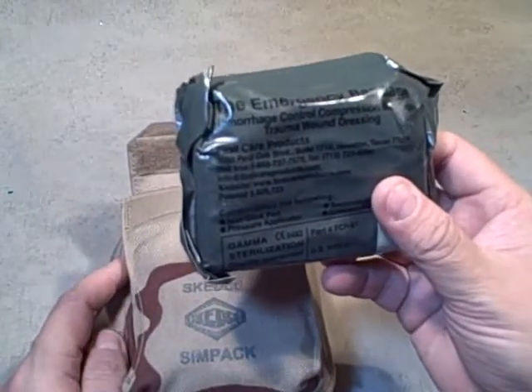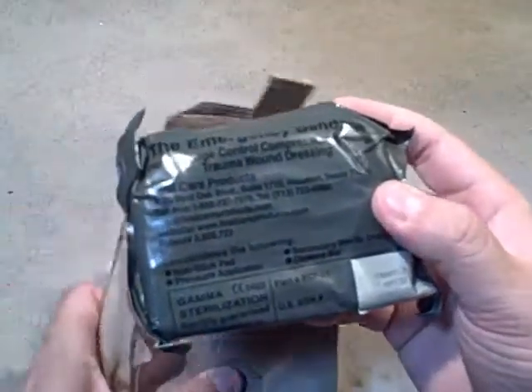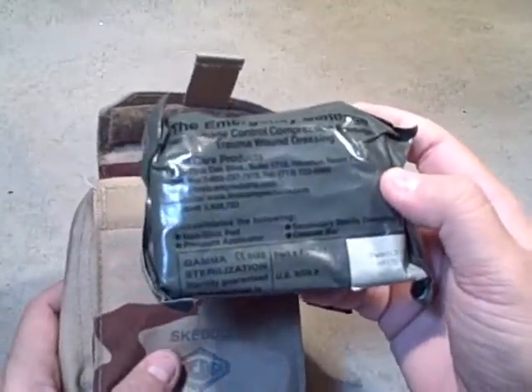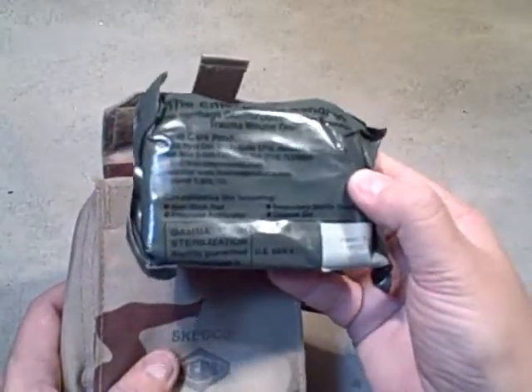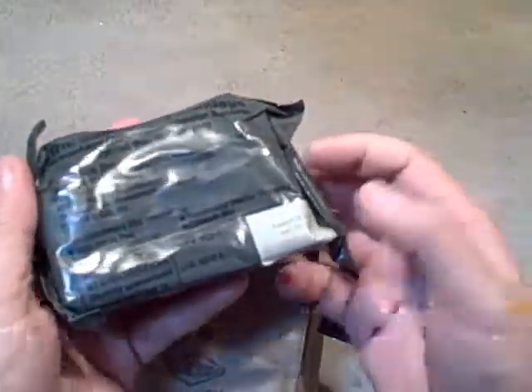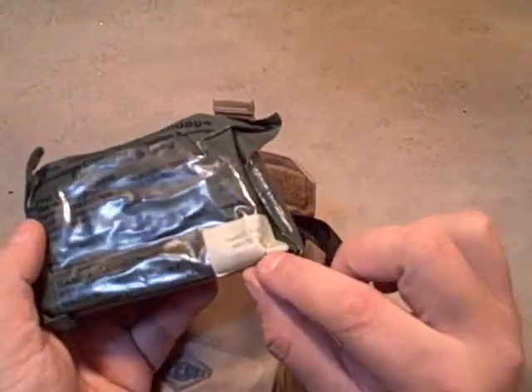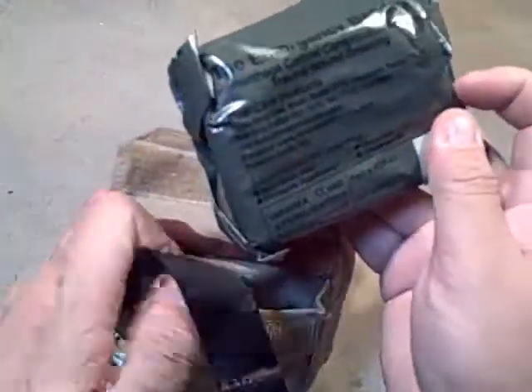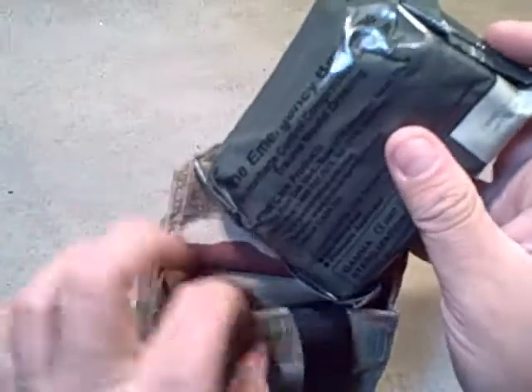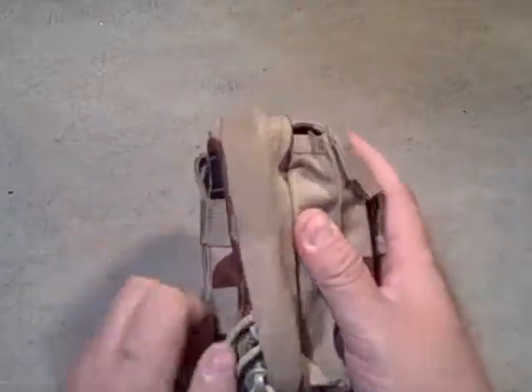This is an emergency bandage — basically bleeding control. It's basically a vacuum-sealed, sterile, OD green non-stick pad, used to apply pressure and control bleeding. It's sealed in green packaging, and the bandage itself is green to be a bit more camouflaged than a big white bandage in a fight. It does have an expiration date — it's going to expire in about six months. That means I'll want to change it out. But I do roll around on this one quite a bit, so I probably should be changing it more often, but like most people I'll let it run to the expiration date.